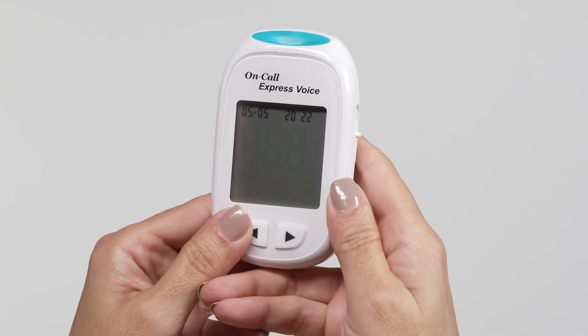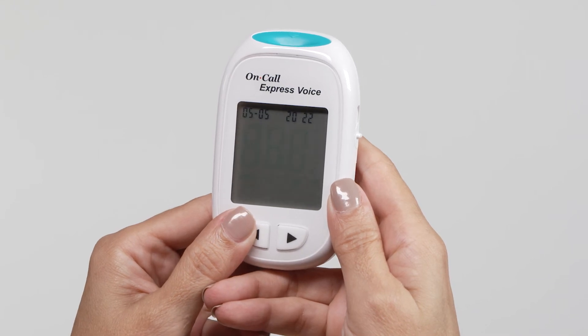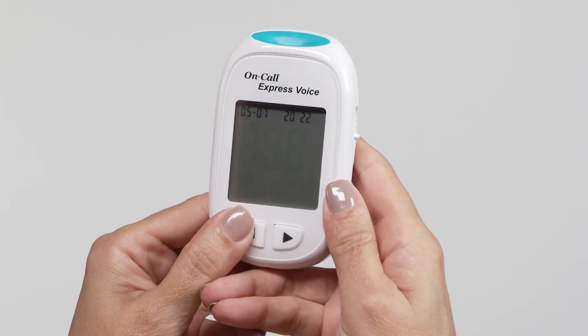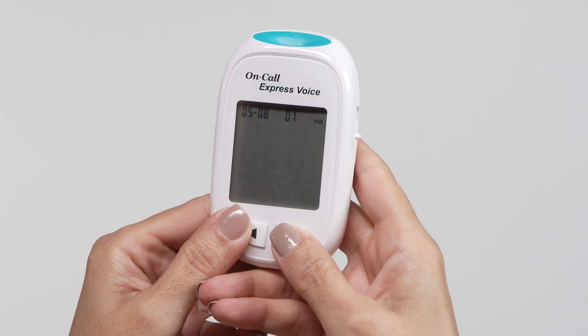After setting the month, the meter will display the date. You can press the left button to increase the date. Then press the right button to save your choice and start setting the time.